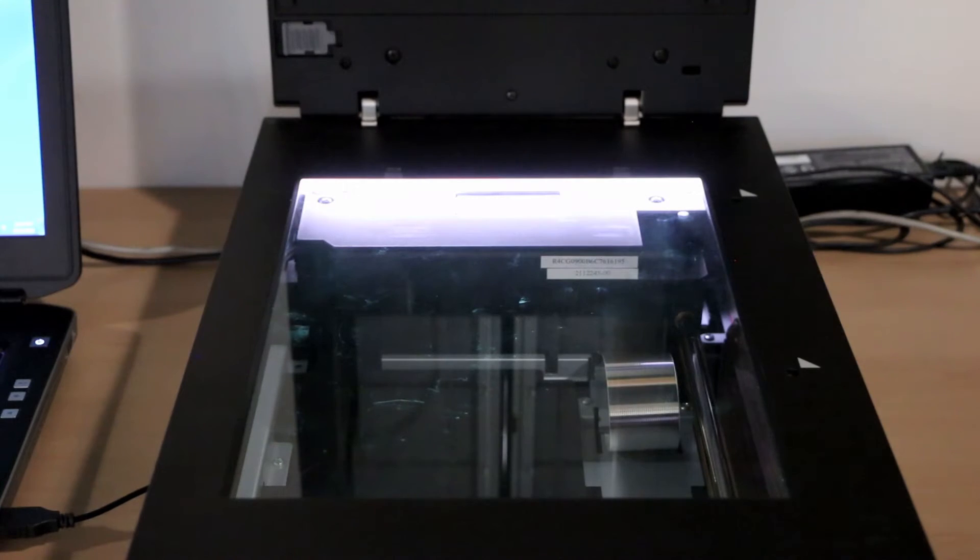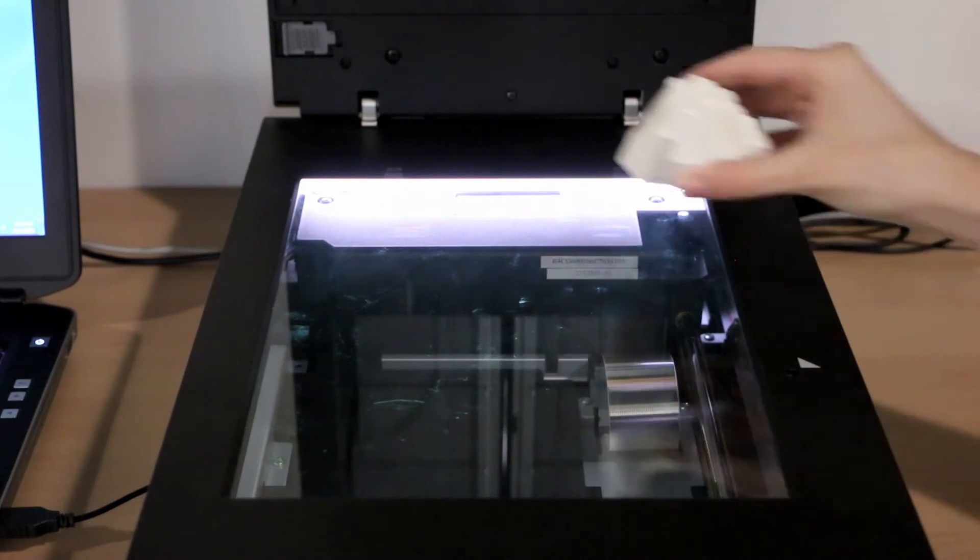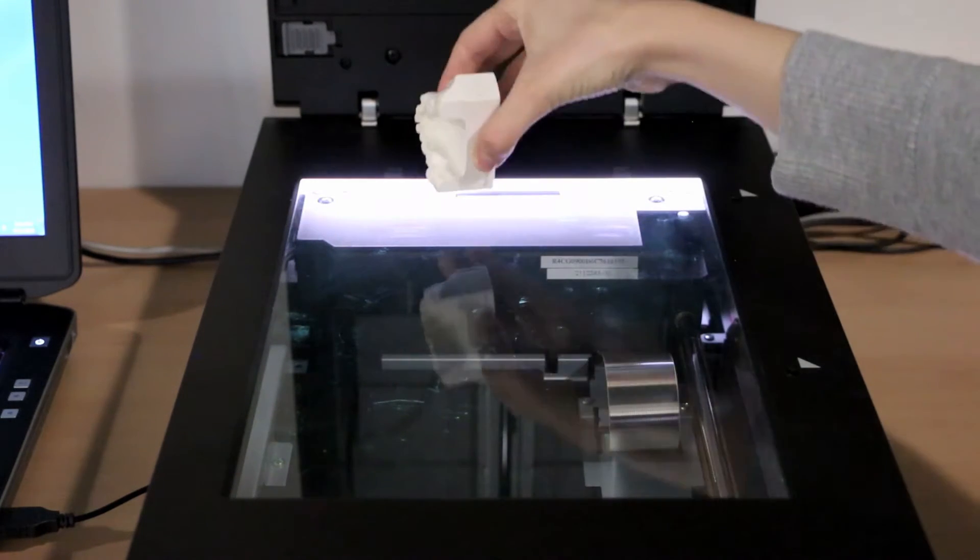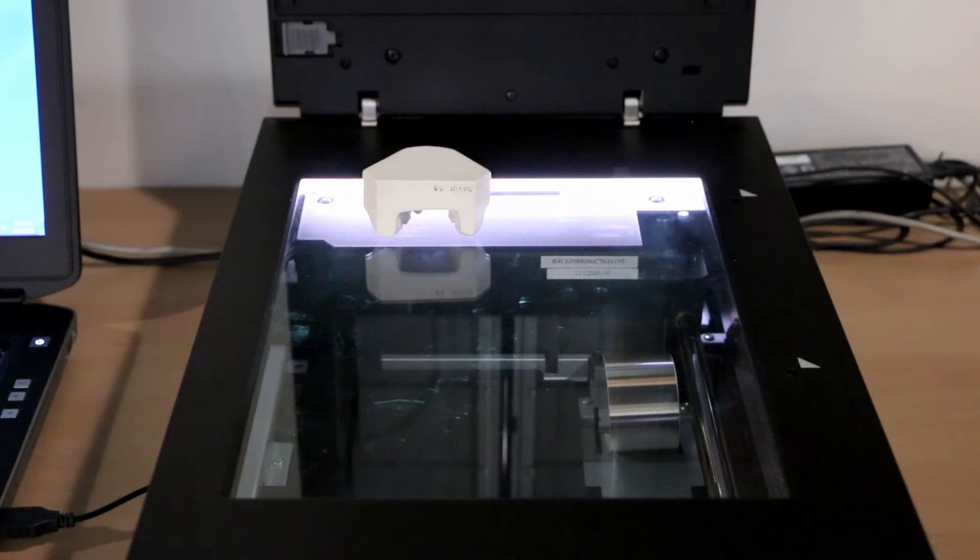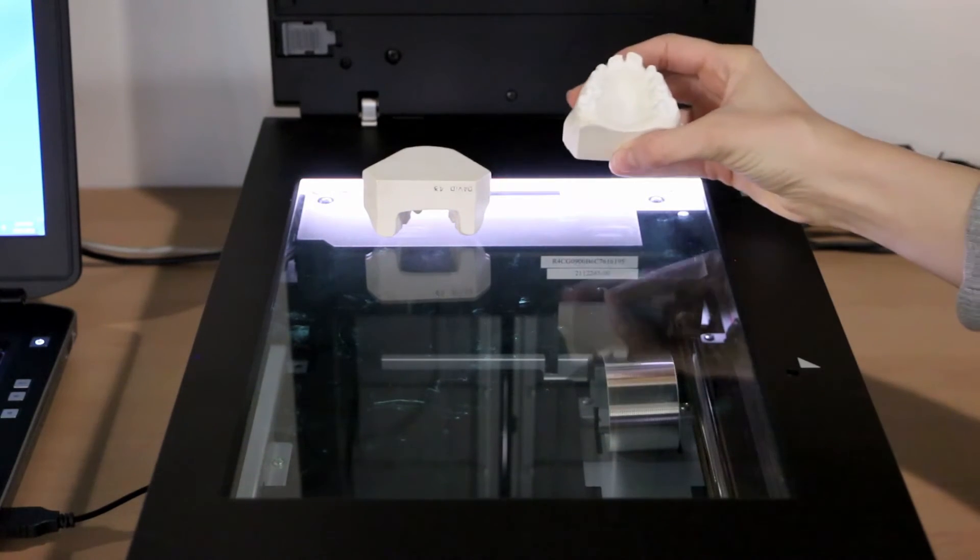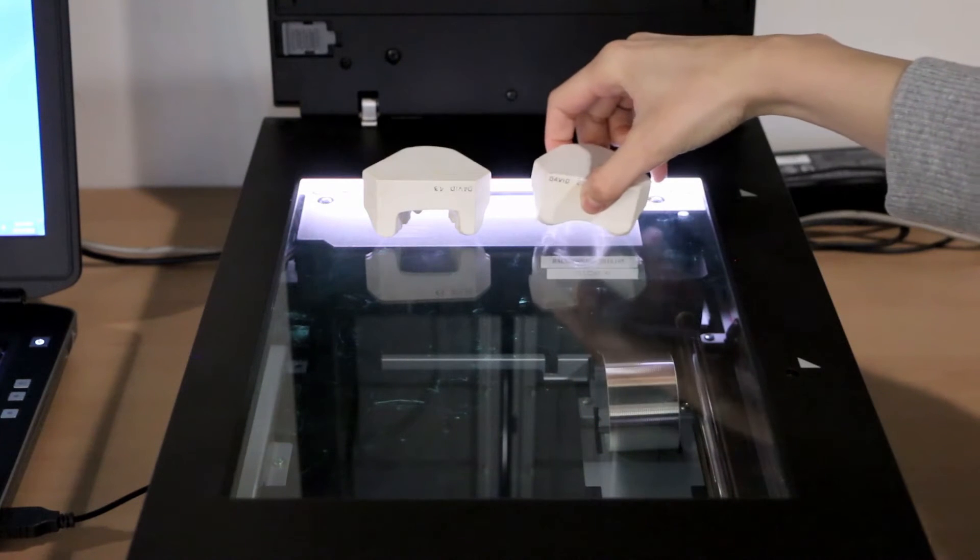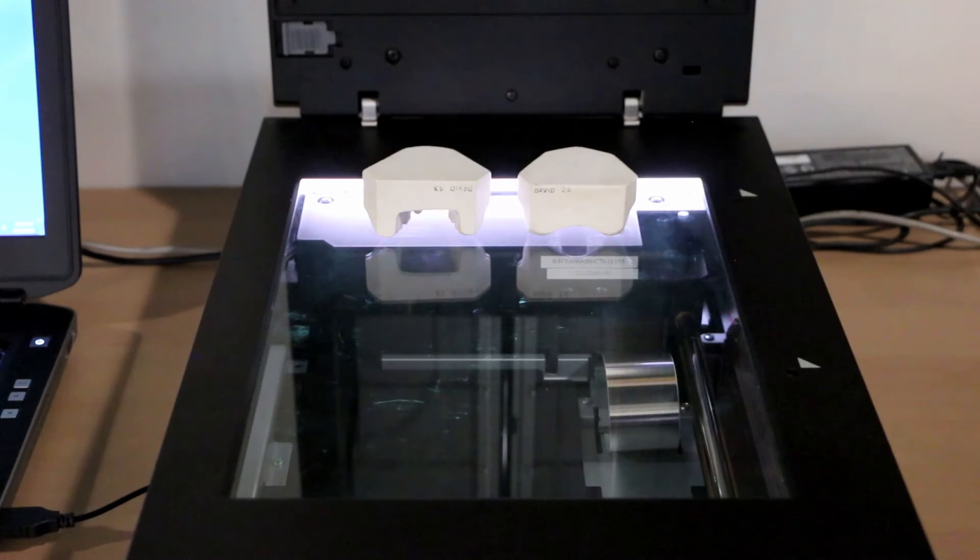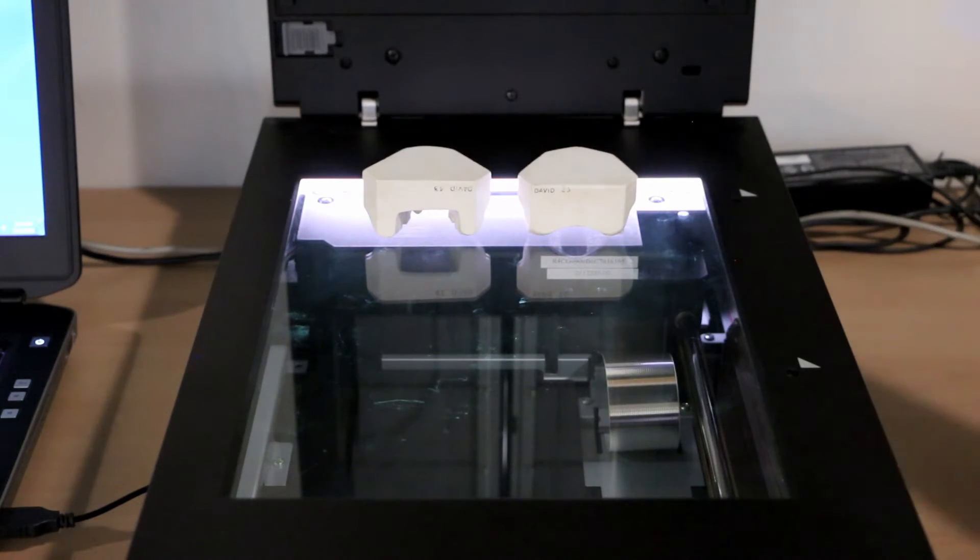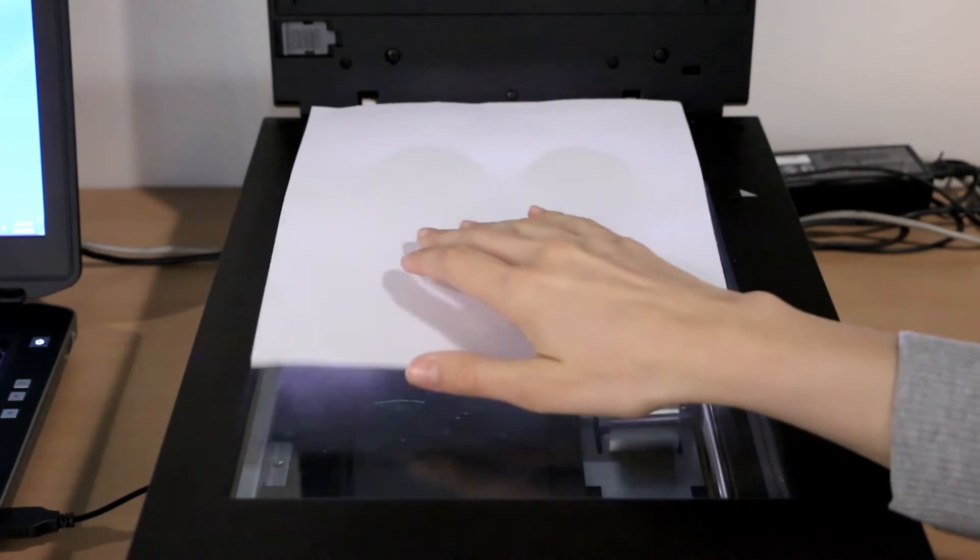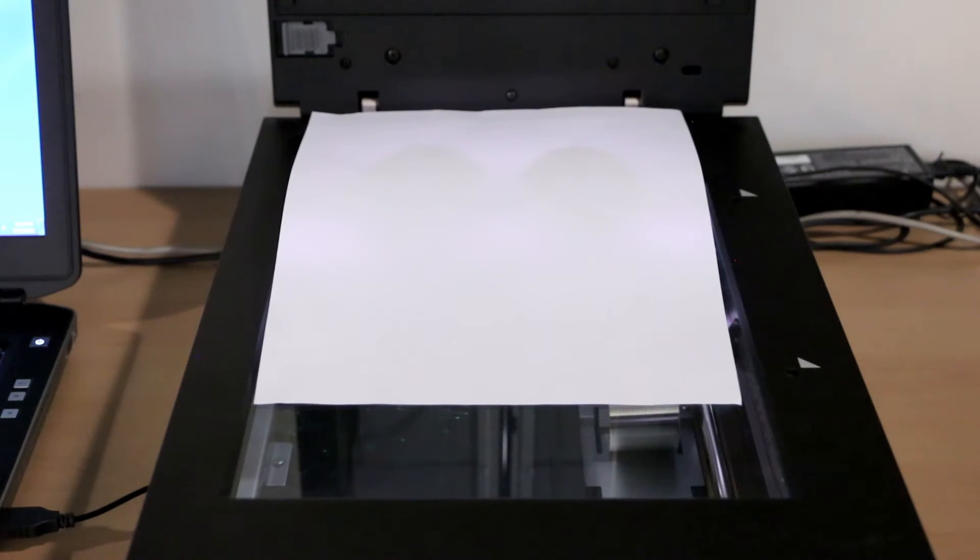For the Double Occlusal View, arrange the models in Double Occlusal View on the scanner so that when it is scanned, the lower arch will show up on the screen on the left and the upper arch on the right, with the anterior teeth facing towards the top. Place a white piece of paper over the models to provide a white background to the image.